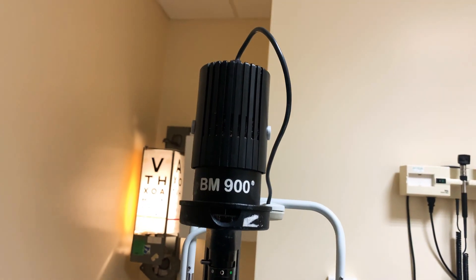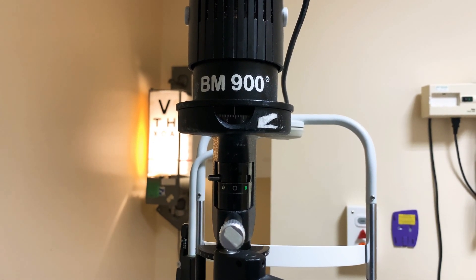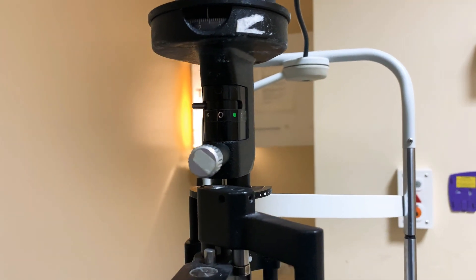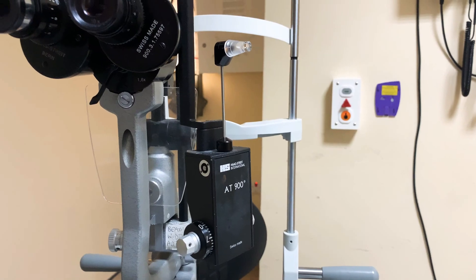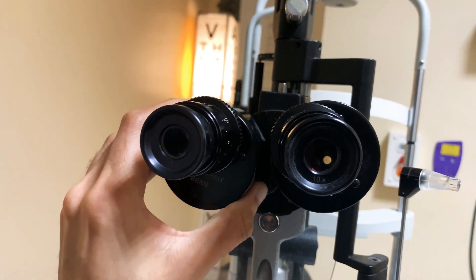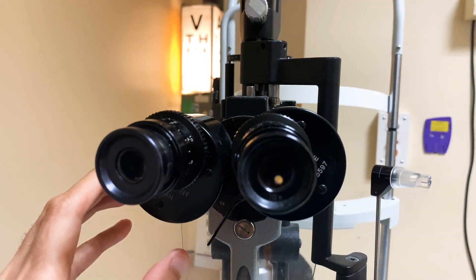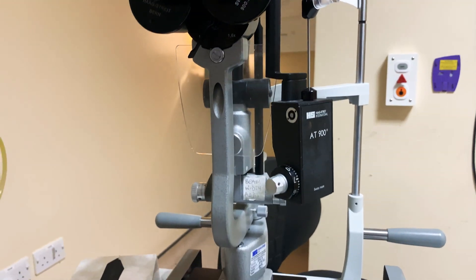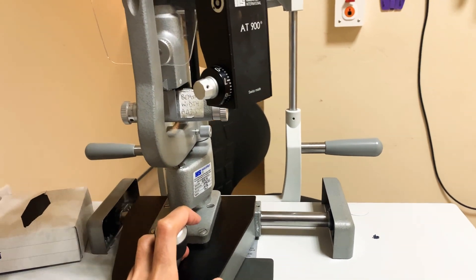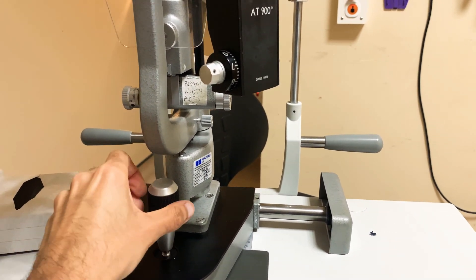So we've covered most of the basics: how to change the slit lamp bulb, the beam height, the blue filter and different filters, the Goldman Applanation Tonometer, changing the interpupillary distance, prescriptions, and magnification. For movement, make gross movements by holding the whole unit and fine movements using the joystick. Turning the joystick clockwise or anticlockwise can change the height.